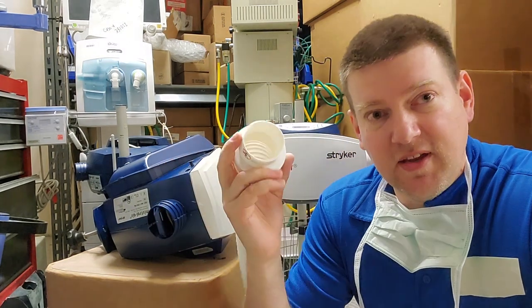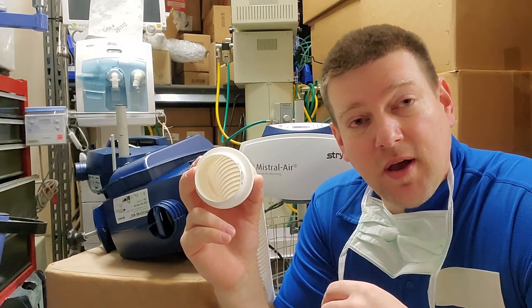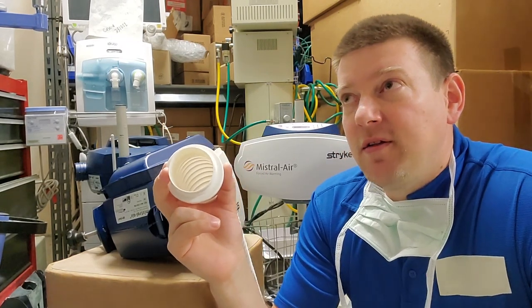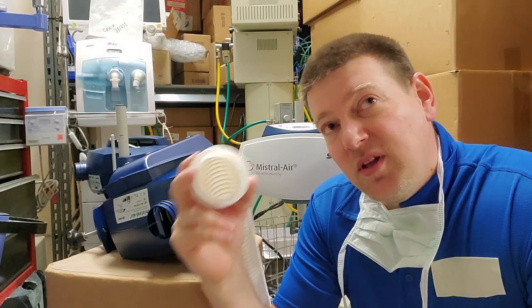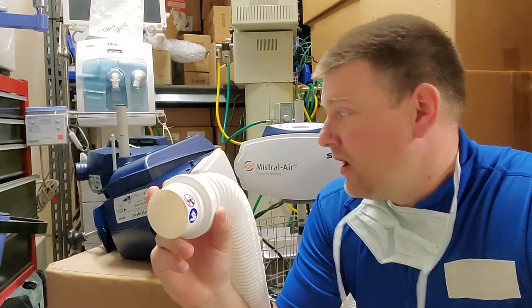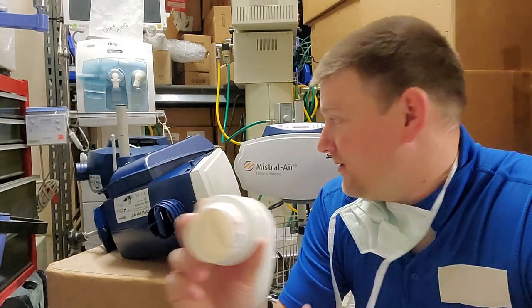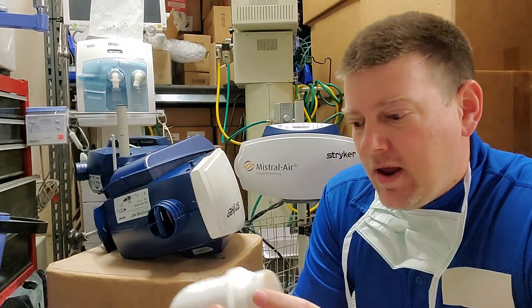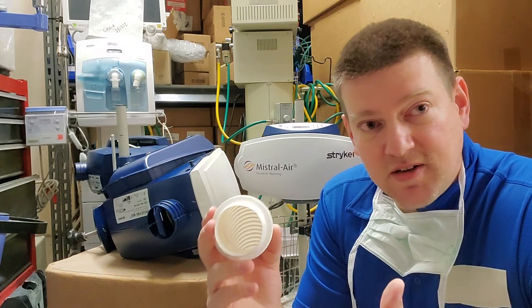This was quite the ingenious design because the old style was a blanket that needed to be cleaned, and if you can imagine the infection hazard of cleaning blankets — plus how do you get all the moisture out? So when they came out with a disposable blanket system — I think Bearhugger was the original brand — since then other companies like Stryker have gotten on board with their own version of a forced air patient heater system.